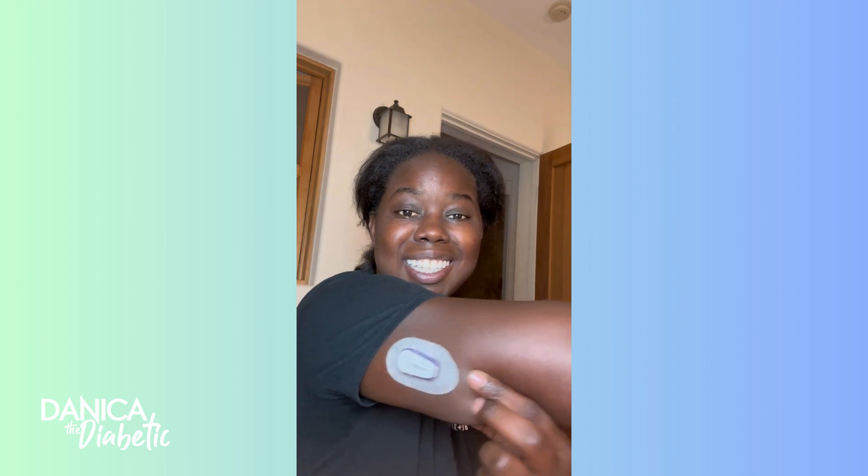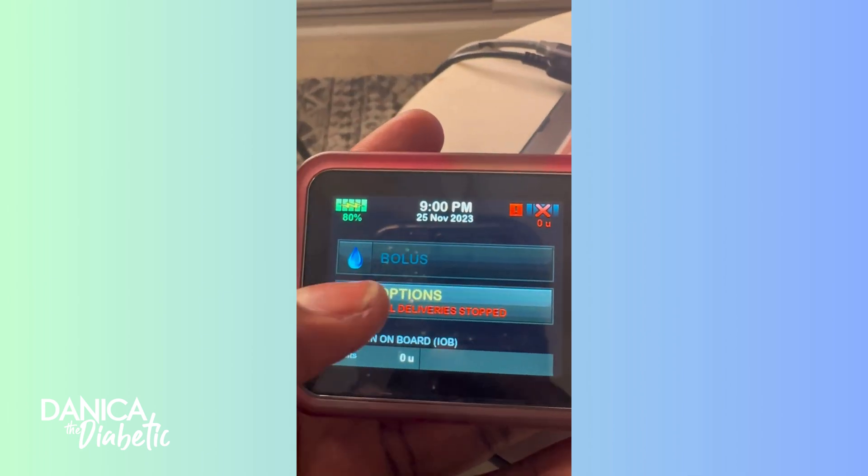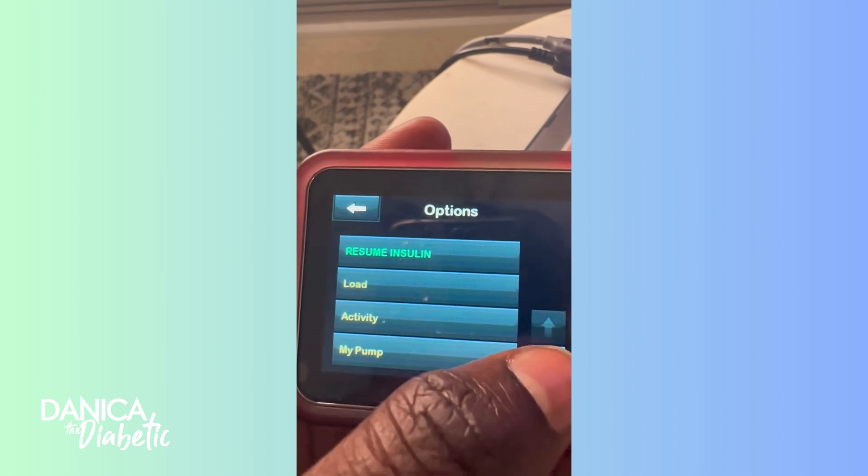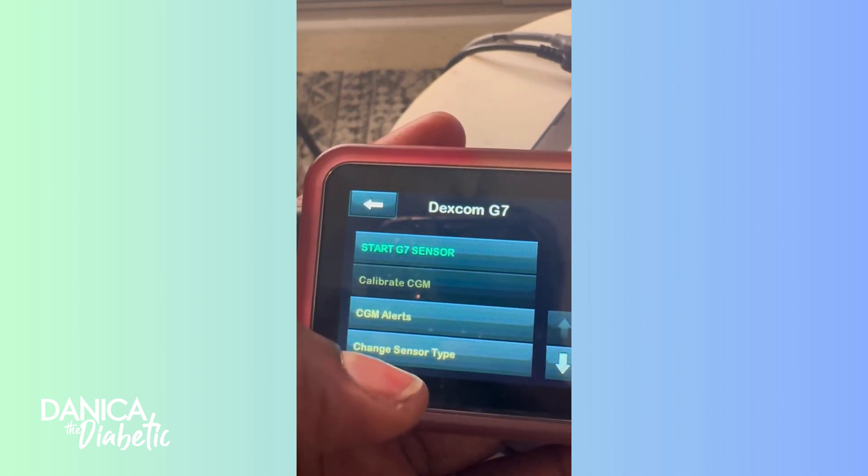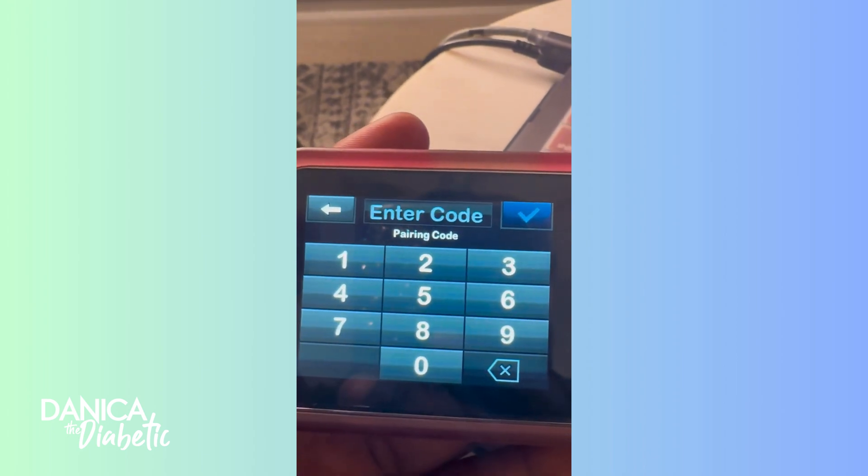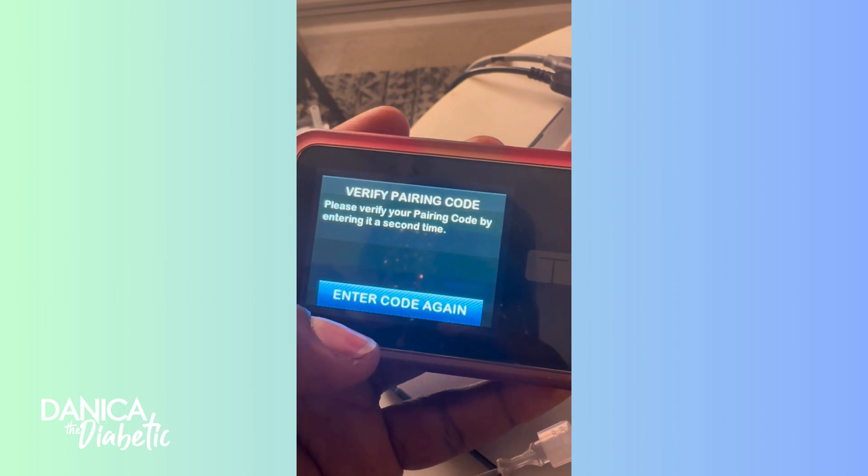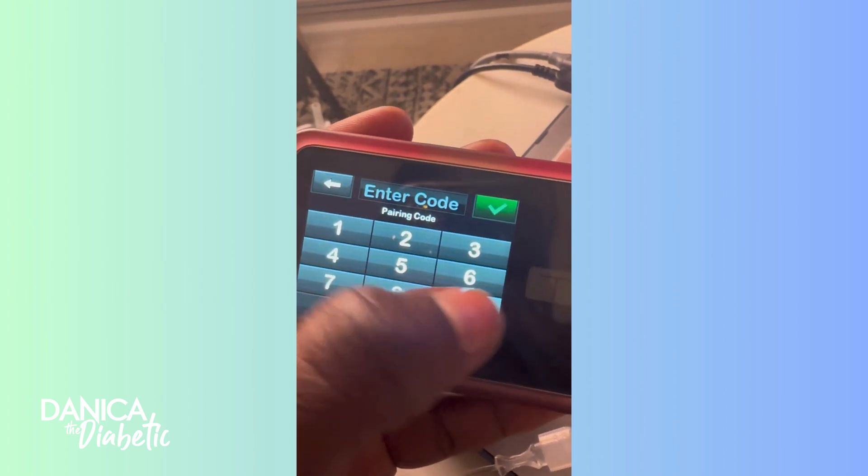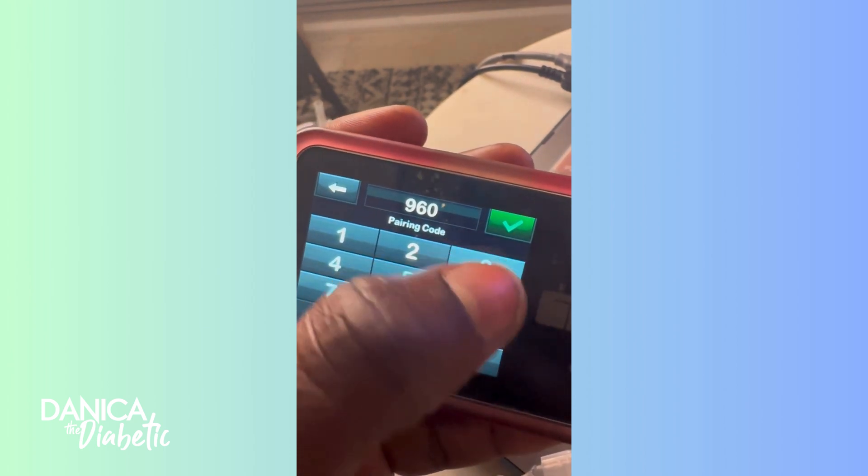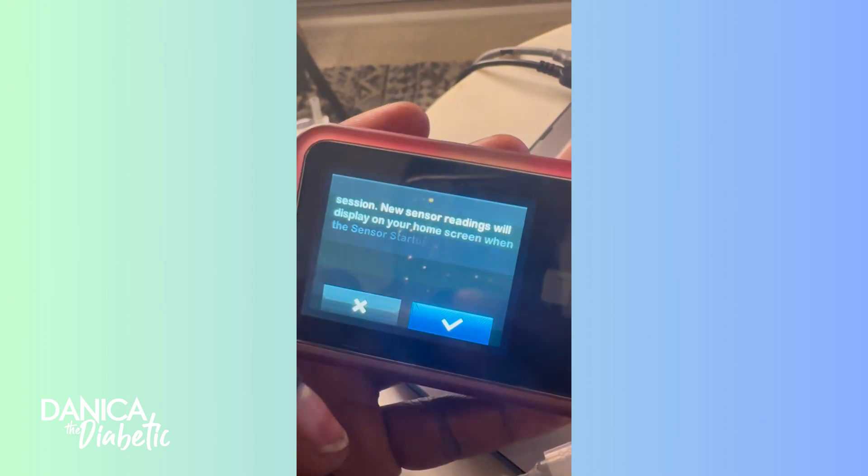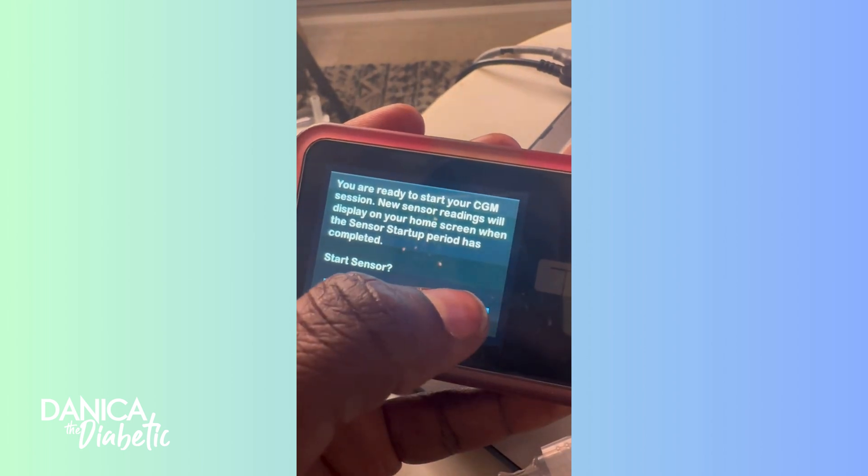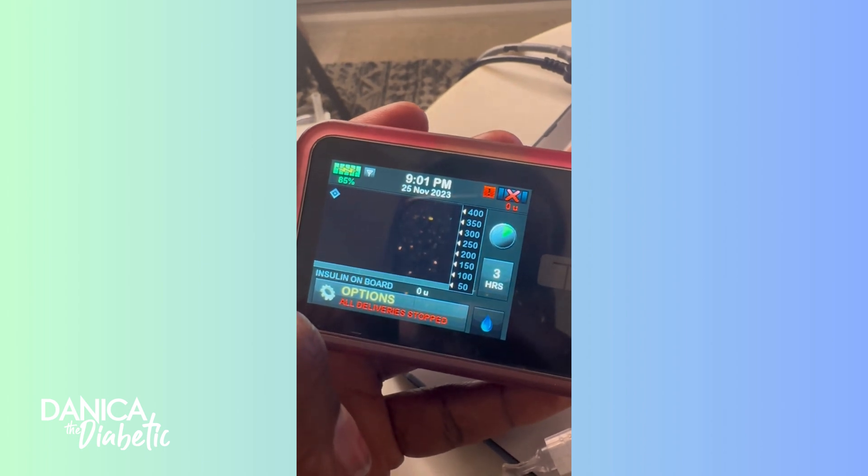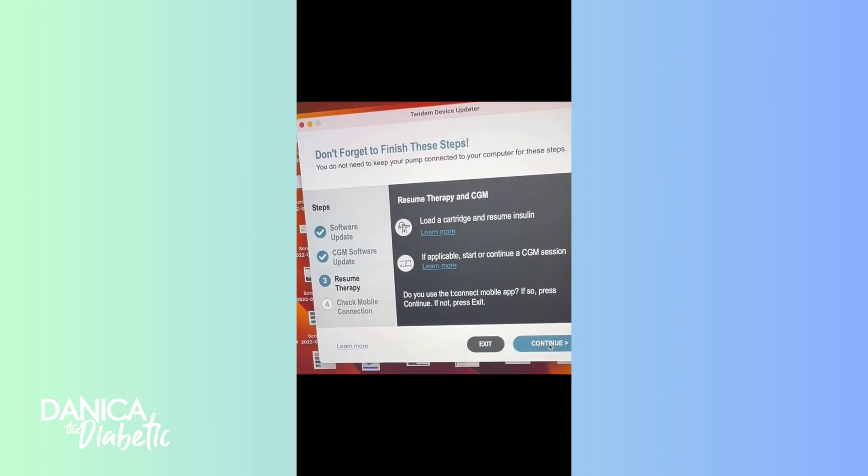As you guys can see, this is the size difference between the G7 and the G6. Once I did all of that, I went back to my pump and you go to CGM. I don't know why my pump was being delayed, but it's like start G7 sensor. It's going to ask for the pairing code, which is on the G7 itself. Then you have to enter it in again. This is very similar to the G6, but I've done this on my pump rather than just on my phone. And boom, you're there. You're ready to do this one sensor startup. And it's so much quicker with the G7.